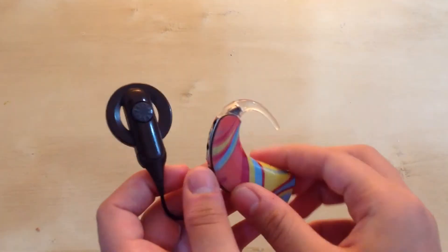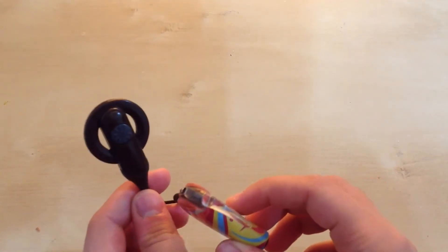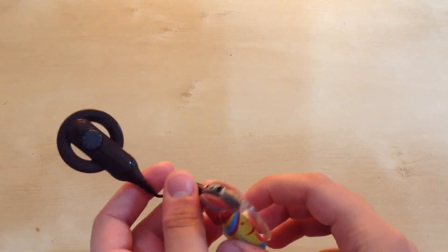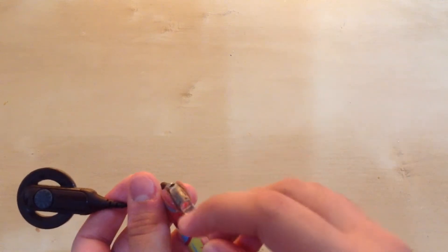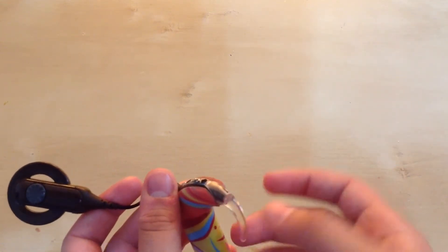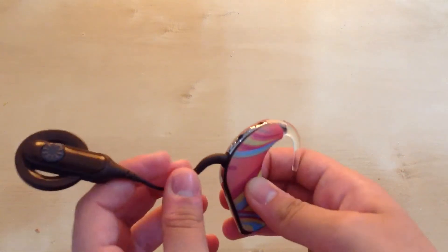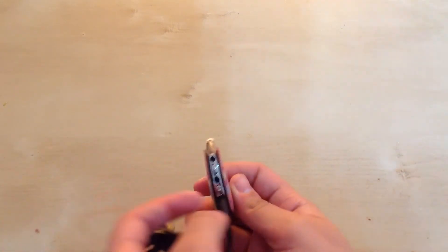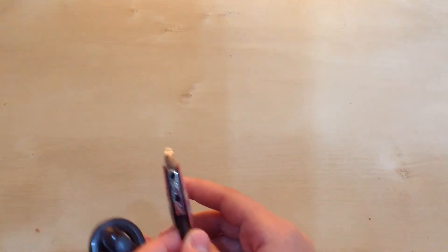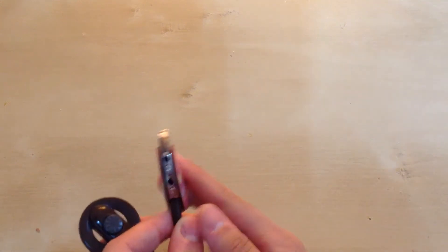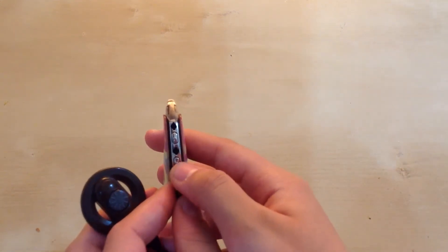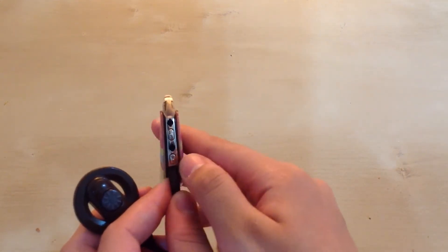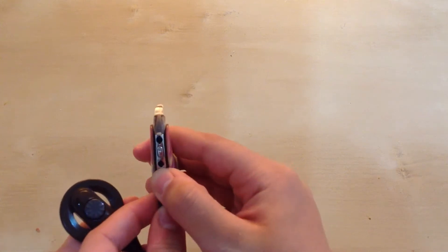My cochlear implant right now is turned off. I know it's off because there's no light here and there's no blinking light or anything like that. I'll go through that in just a second after I show you how to turn it on. To turn it on, you have to press the bottom button for about three seconds.